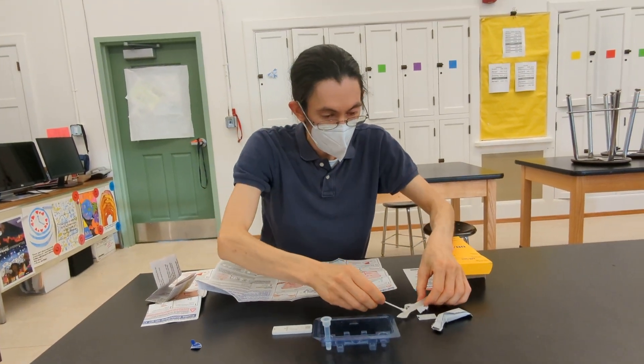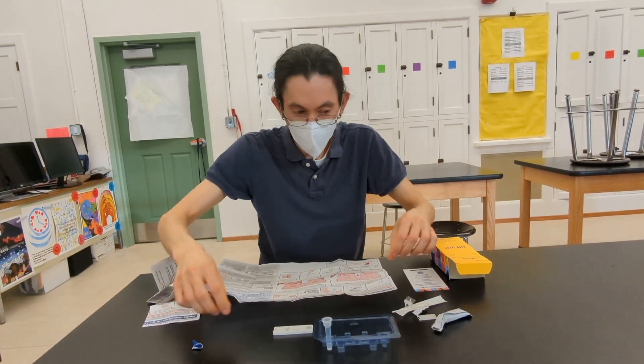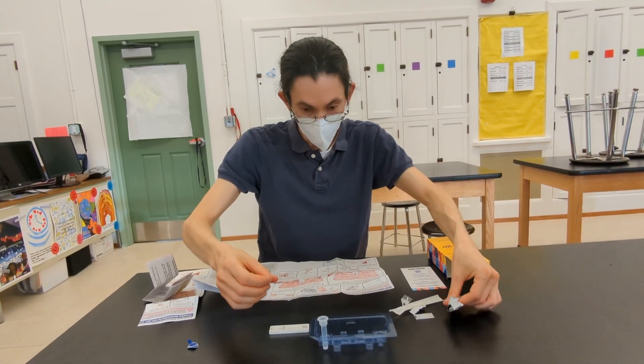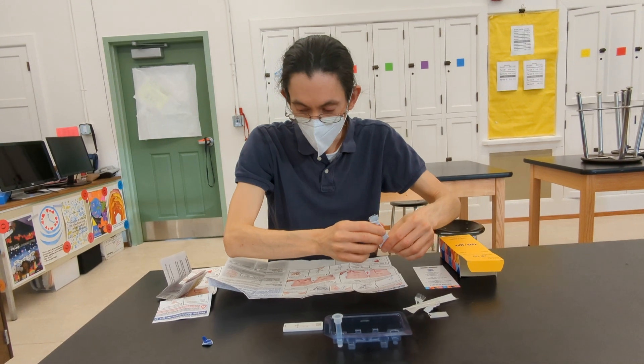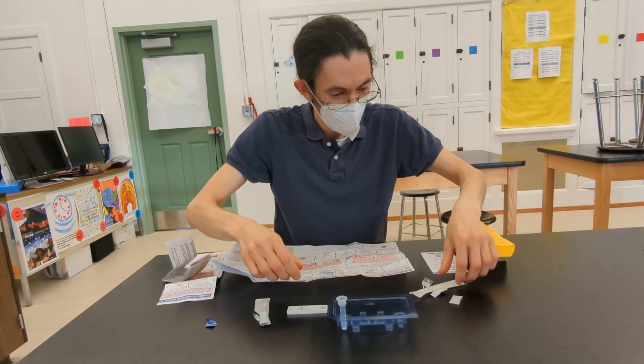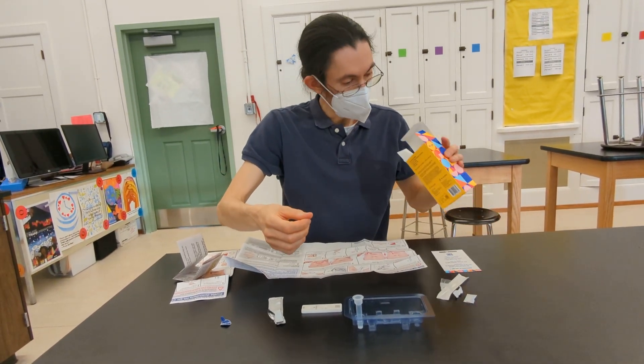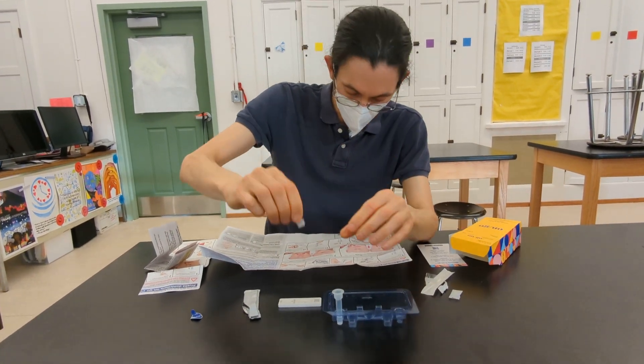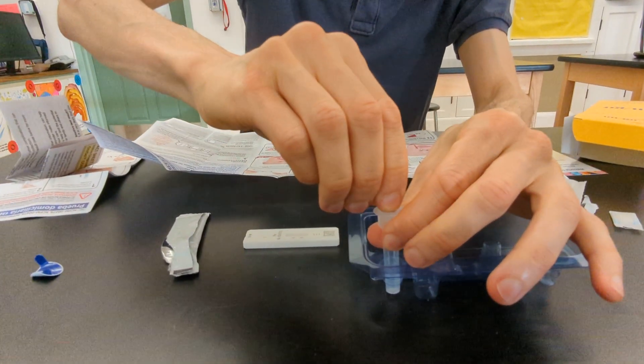Place it back in there, put this in the packaging and you're going to locate the lid, which is missing from this test. It is, but there's a lid. Oh, here it is. And you're going to place it on top and make sure that it's firmly sealed.